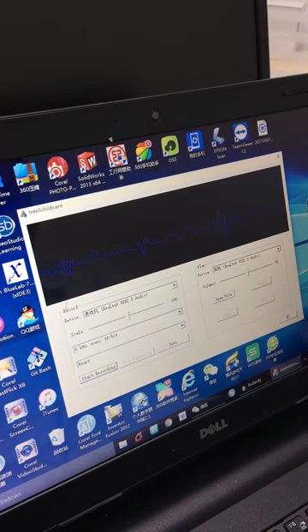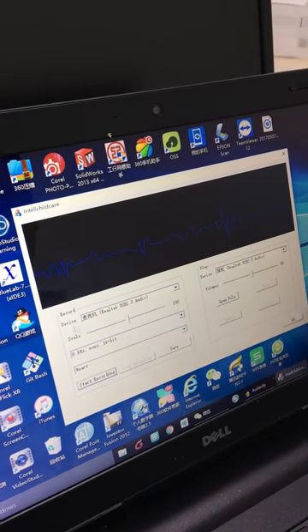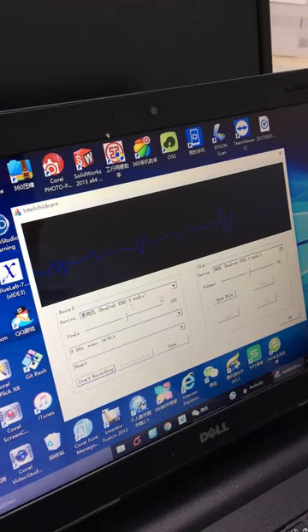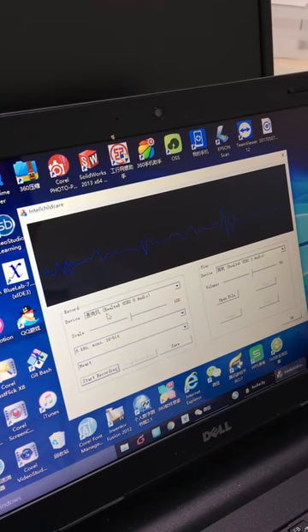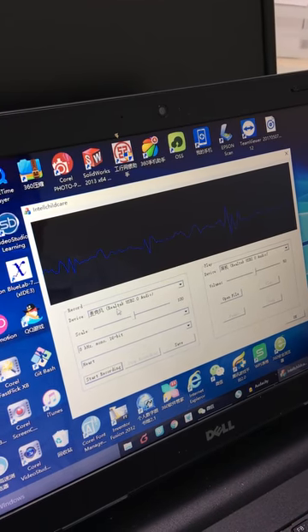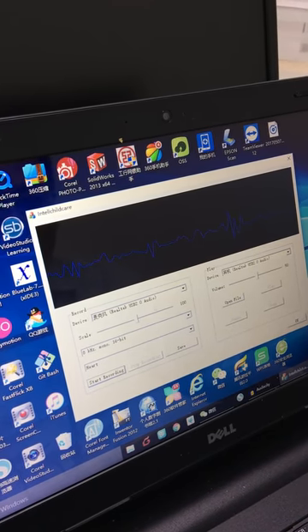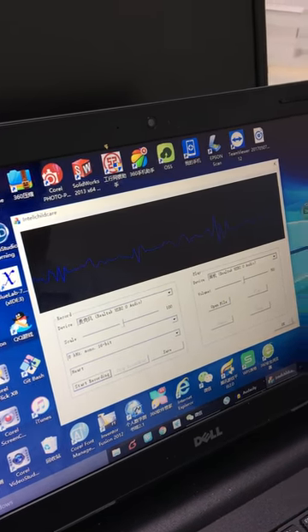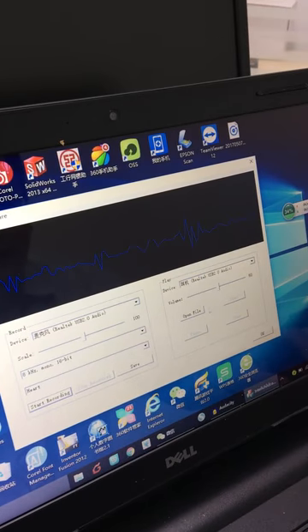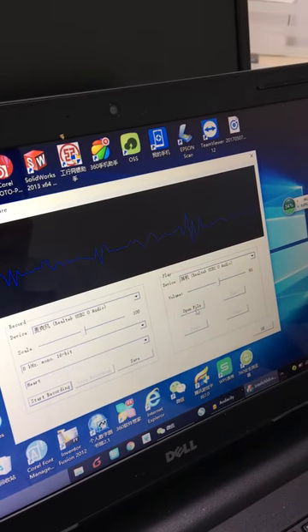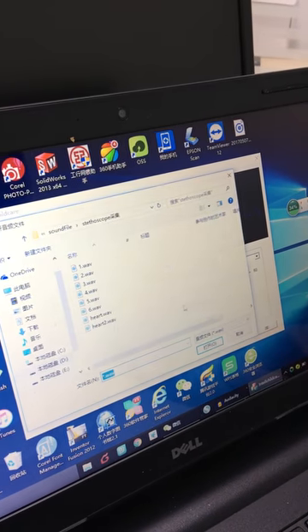Pay attention to the device. Also, it's Realtek USB 2.0. Then, we can play it on our software. Open file.